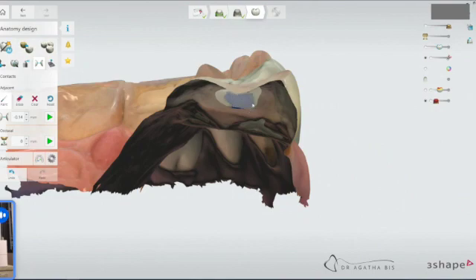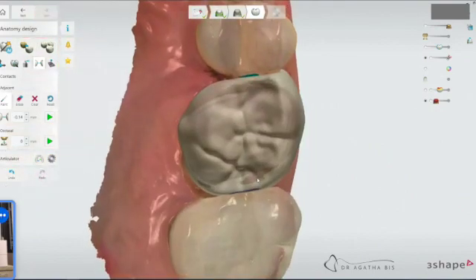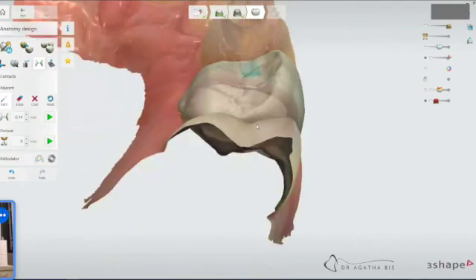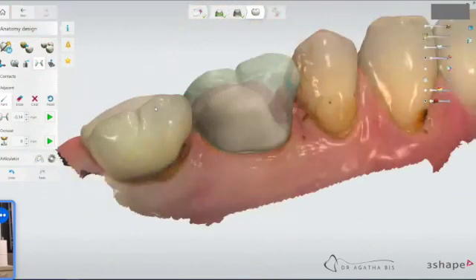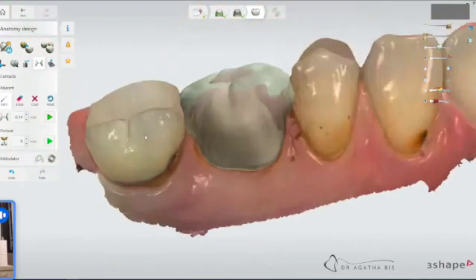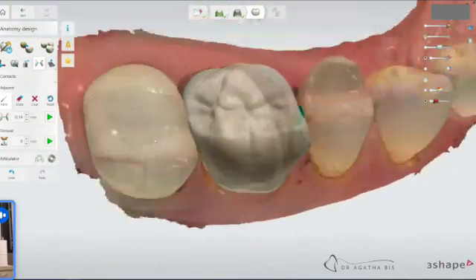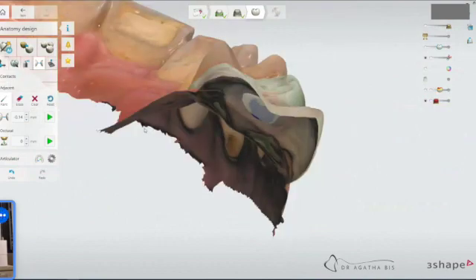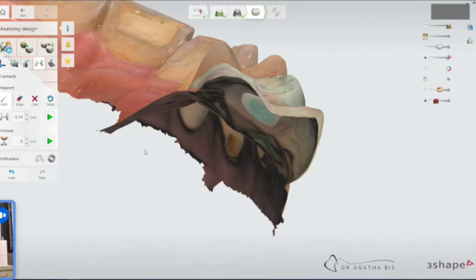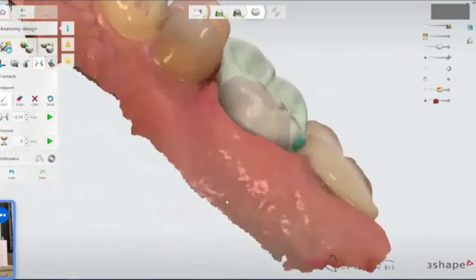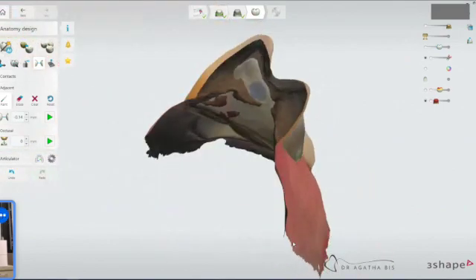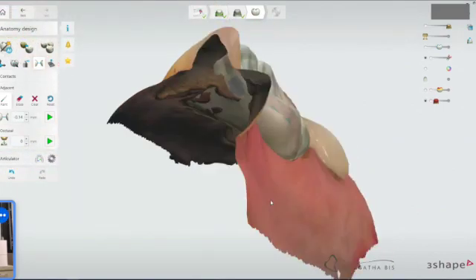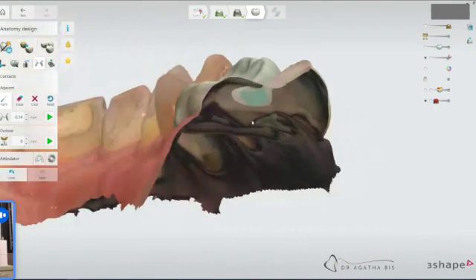I'm going to tweak it in a minute. So now that we've got this, you still want to go back and play it so that it resets at 0.14 in that area that you drew it in. So there we go. Now we've got nice contacts here and nice contacts here.